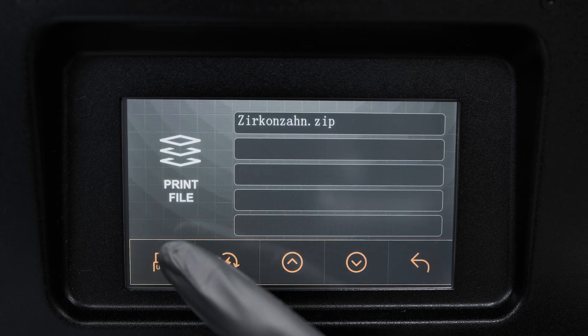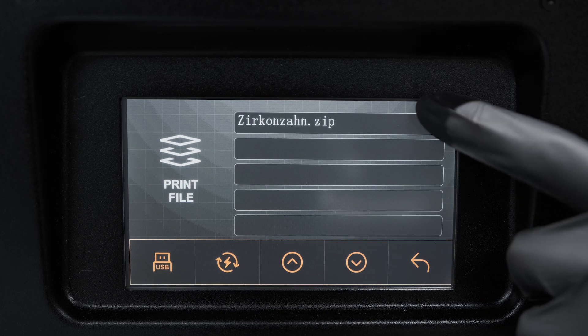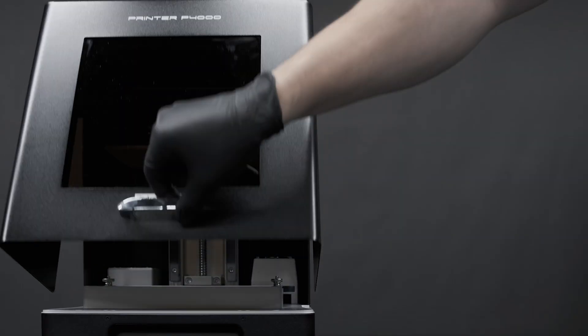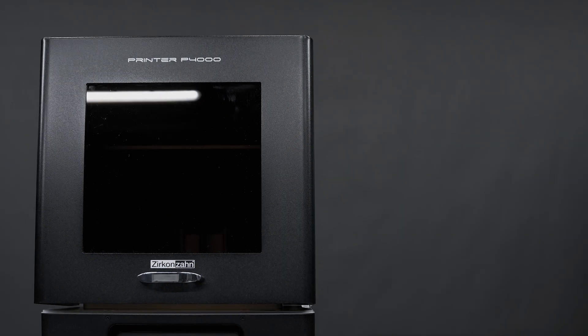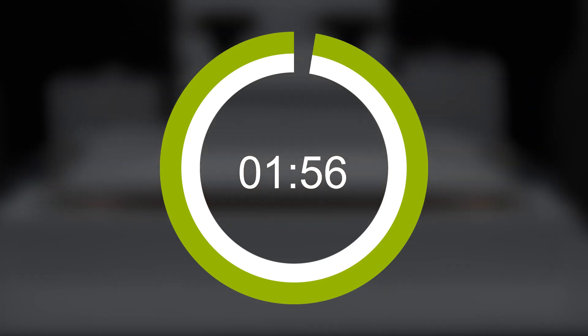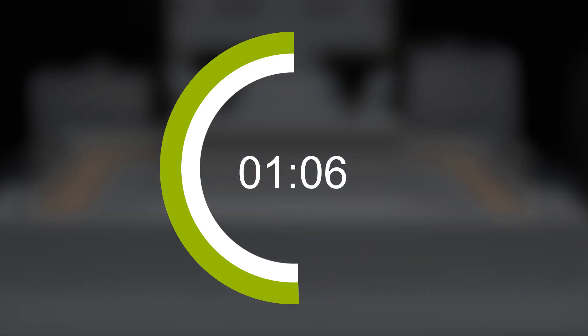At this point, press the print button on the printer touch panel. Click on the printing file and confirm. Make sure the front door is properly closed before starting the printing process by clicking on yes. If during printing the resin level drops, refill the resin vat.